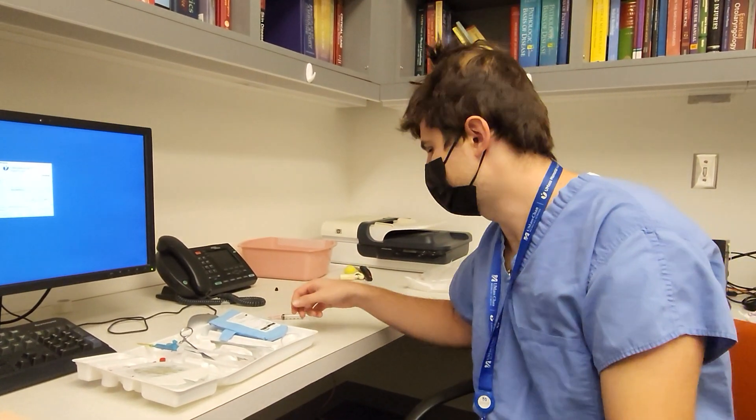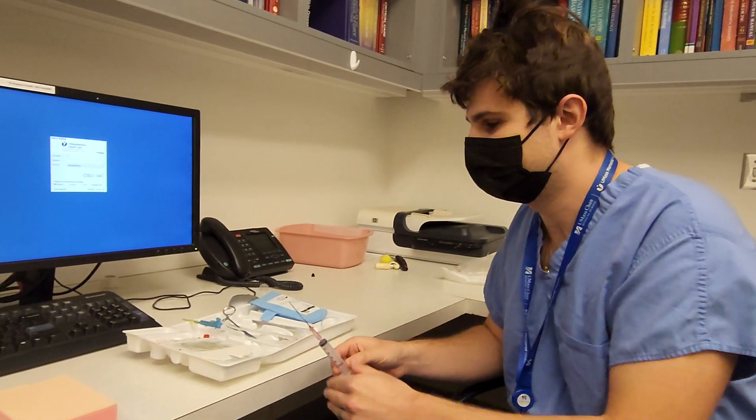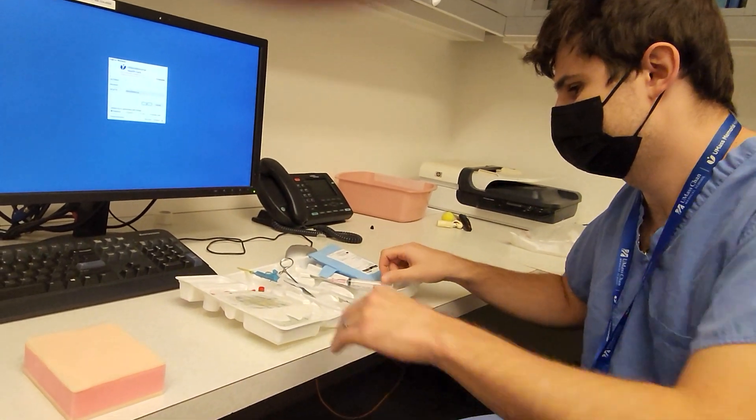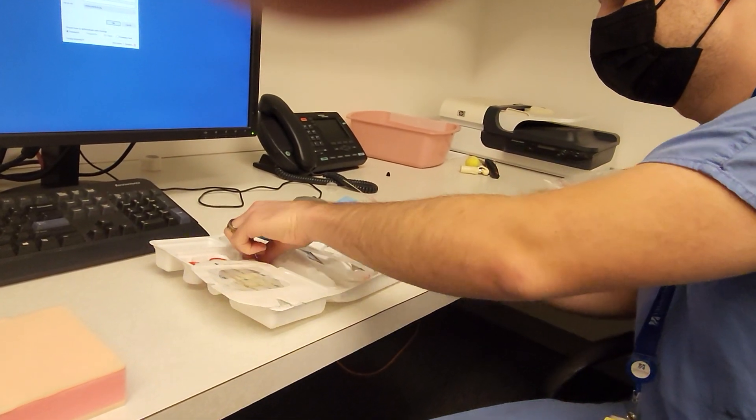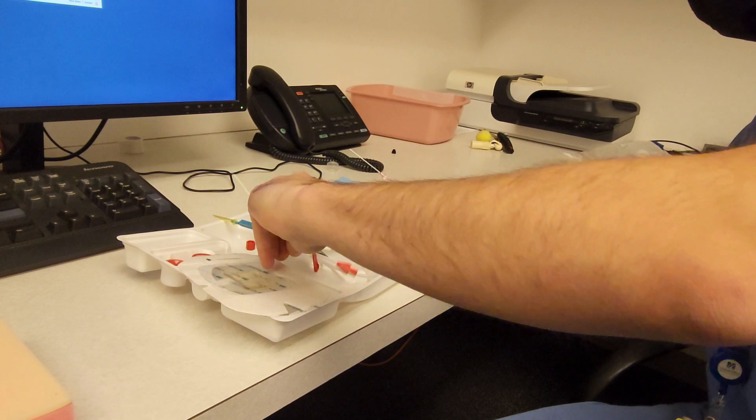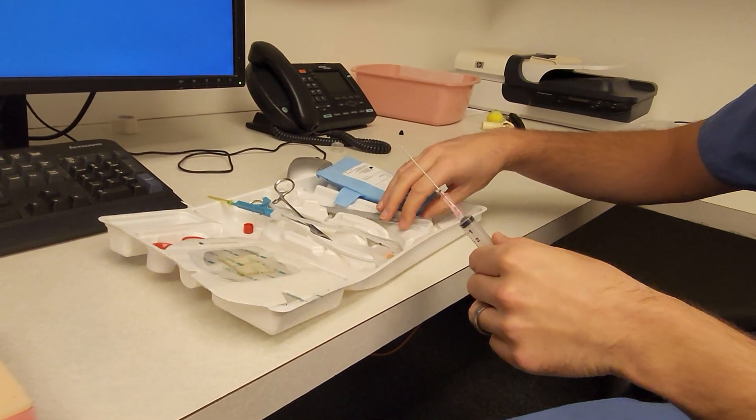All right, so this is the femoral arterial line kit. Quick demonstration on what to do.